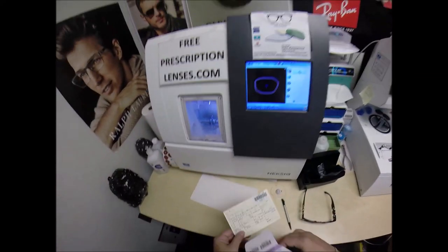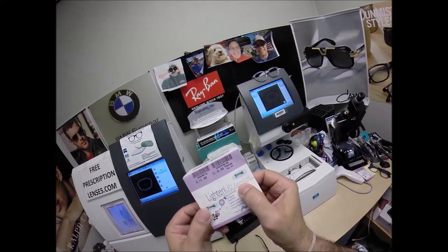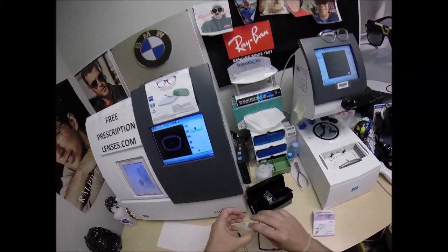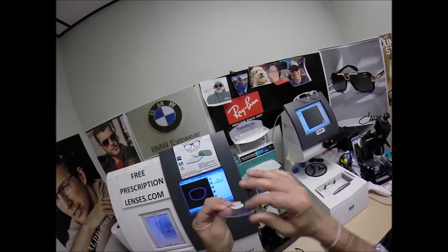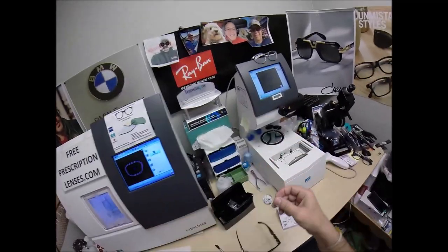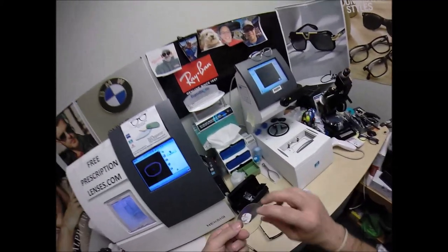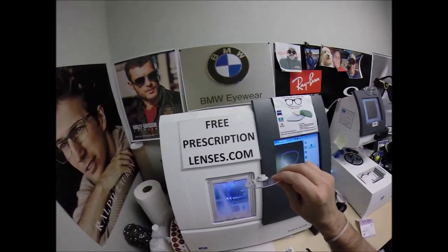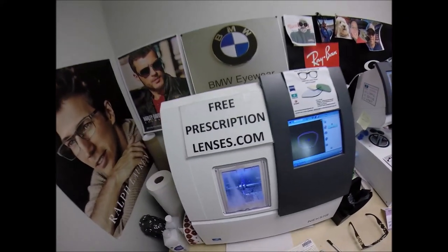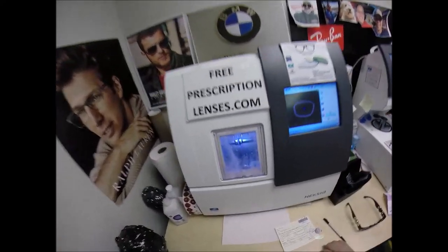You upgraded to the anti-glare coating, which costs $44.99. Any lenses you get from me are made out of polycarbonate but they're also aspheric — aspheric simply means not spherical. A basketball is spherical; aspherics have a flatter front curvature to fit today's flatter curvature frames. When you buy glasses from people online, they charge you for the prescription, then charge again for thinner polycarb, then charge a third time for aspheric lenses. With me, everyone gets all of that for free with every frame purchase — I make premium the new standard.